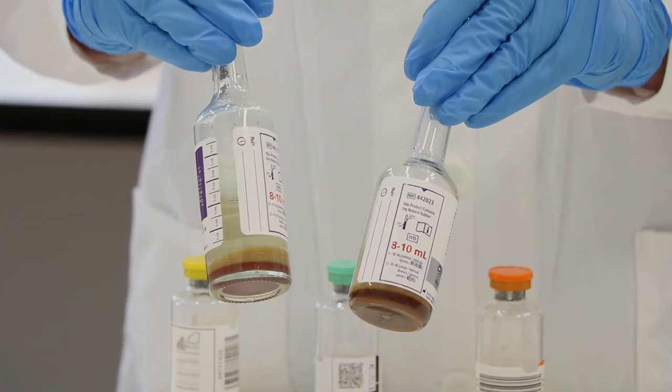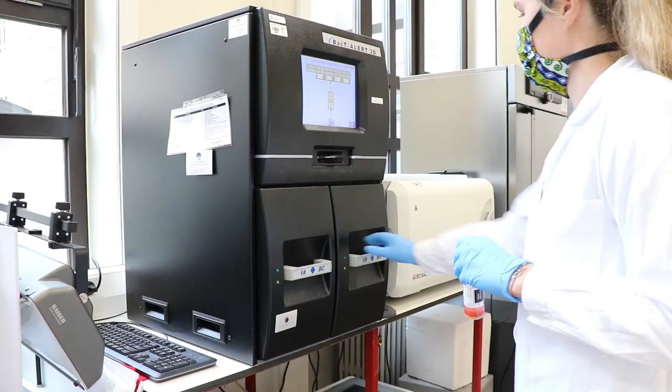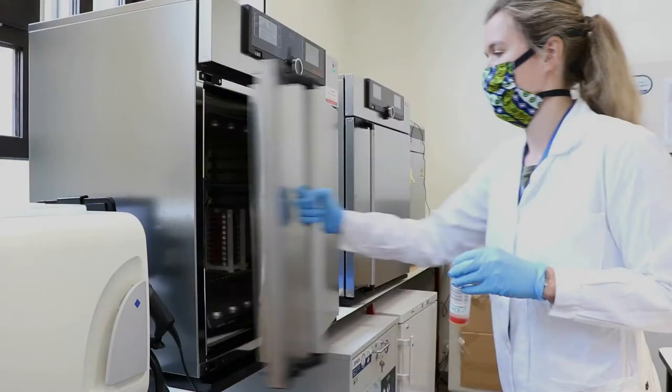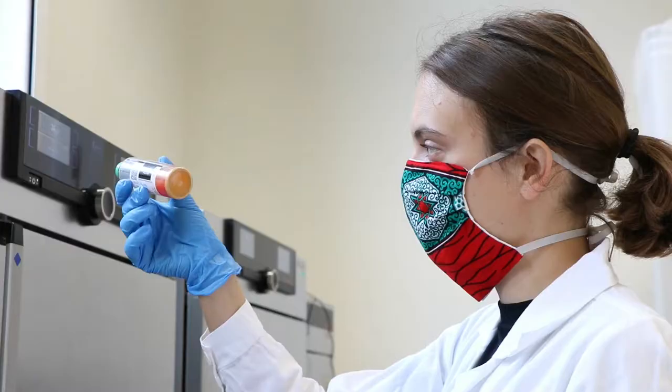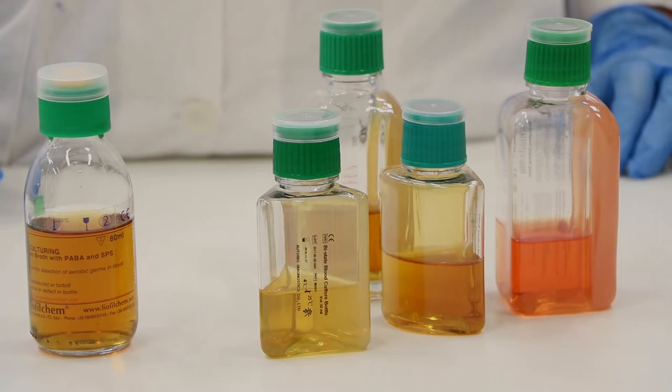In this video, you will see BactiAlert blood culture bottles of BioMérieux. However, in your hospital, you might have a different brand, like Bactec of Becton Dickinson. These bottles are designed for use in automated equipment. However, we validated the incubation of BactiAlert bottles in a conventional incubator with visual inspection for growth.